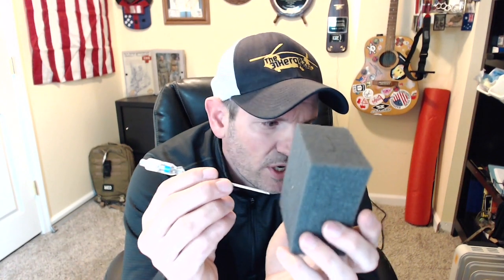I'll move my fingers so you can see that. The theory here is — I'll use this to simulate the patient's chest wall — if you were trying to do a decompression to relieve symptoms, you would find your landmark and insert your needle. I'm going to hold it here so you can see this spring. As you're going through, you're going to meet resistance going through that intercostal muscle, and you can see the blue spring moving. As I'm going through, I'm feeling that resistance, and then as I come out the other side, there's an audible click — and you can see the blue spring move.